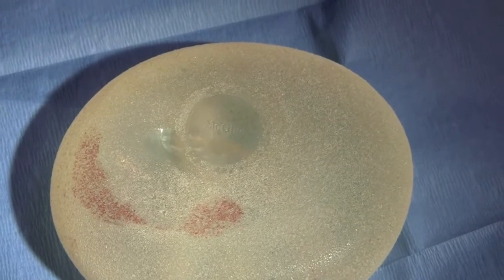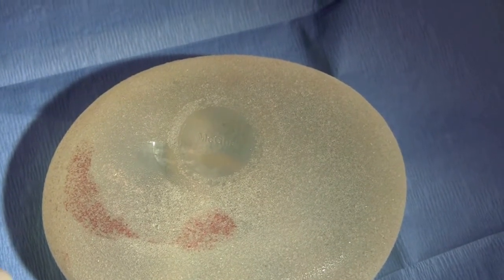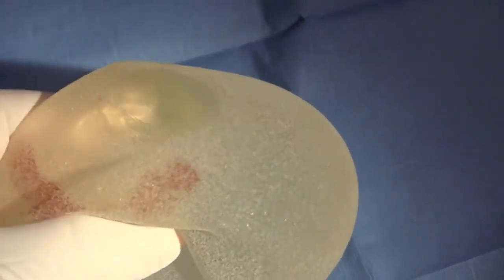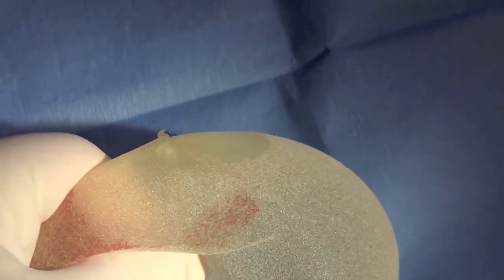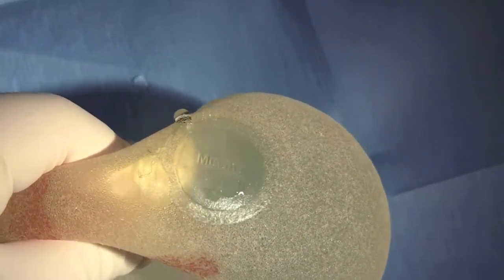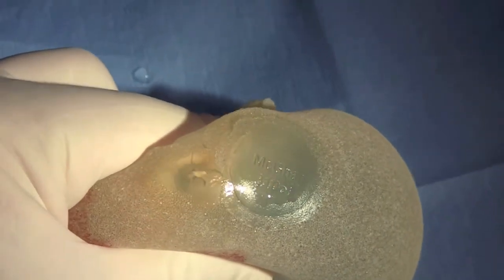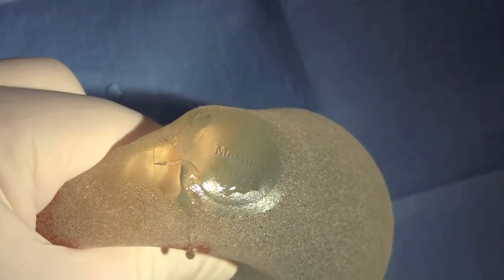I just removed this deflating saline implant from a patient and you can see where the leakage is coming from. I'm just going to squeeze on it here and you see this little dripping. The dripping is coming out at the edge of the patch.